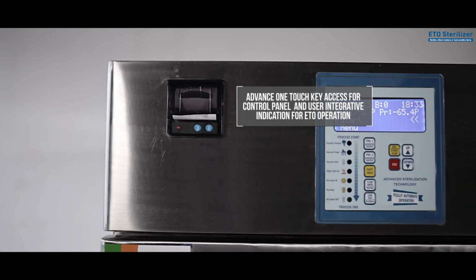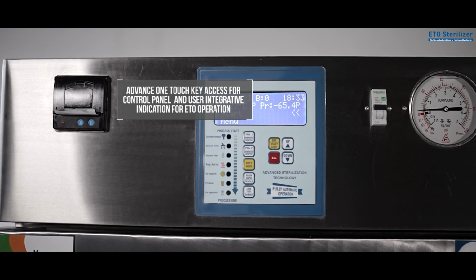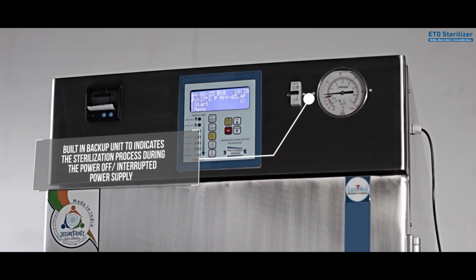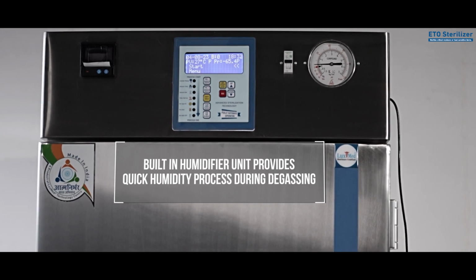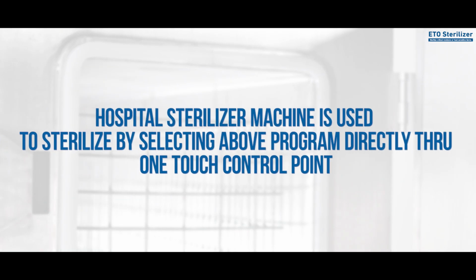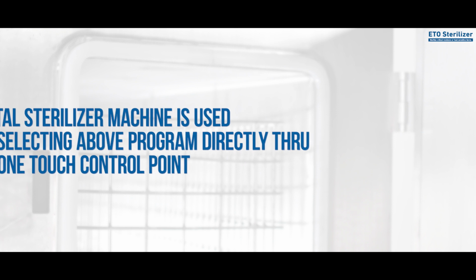Advanced one-touch key access for control panel and user interactive indication for ETO operation. Built-in backup unit to indicate the sterilization process during power off or interrupted power supply. Built-in humidifier unit provides quick humidity process during degassing. Built-in 8 program and prefix options for hassle-free operation. The hospital sterilizer machine is used to sterilize by selecting the above program directly through one-touch control point.